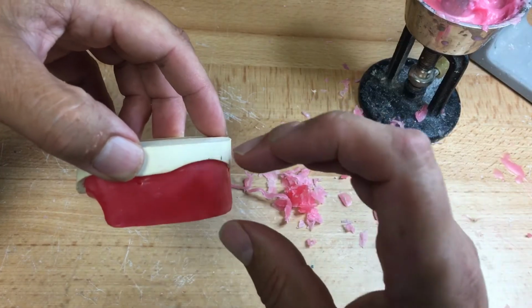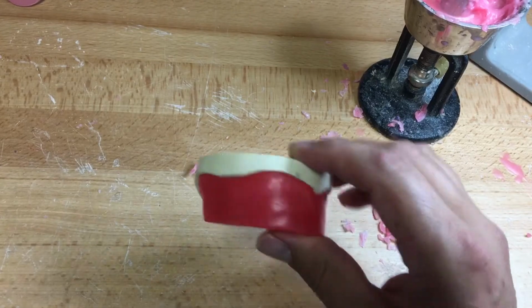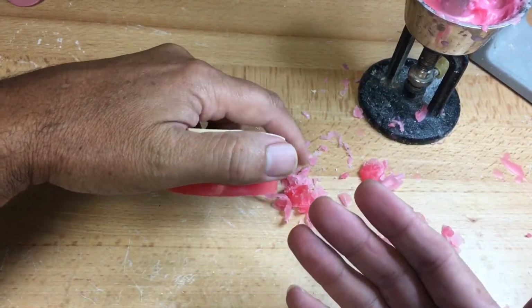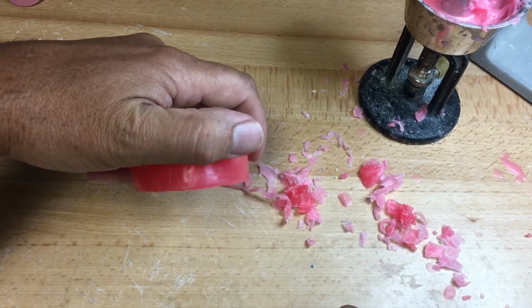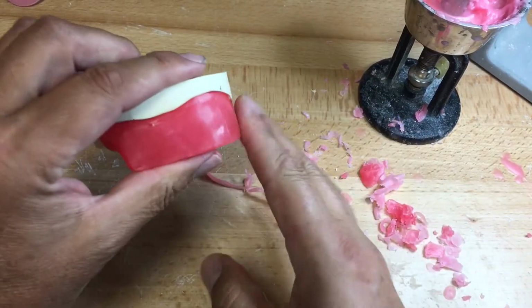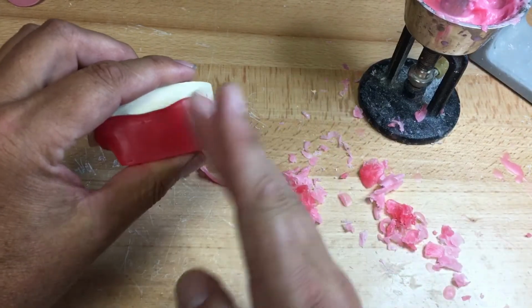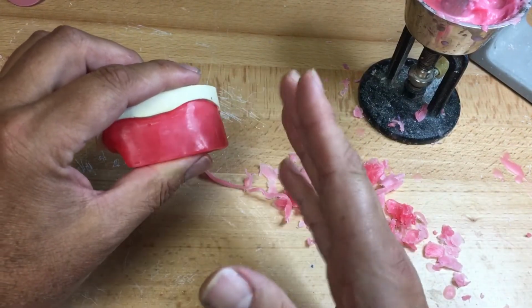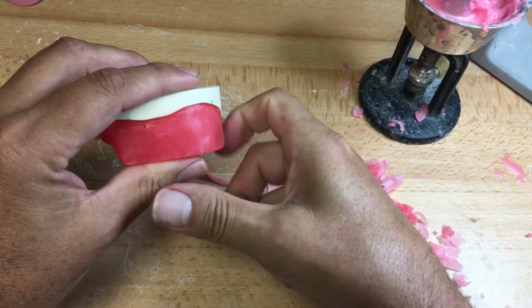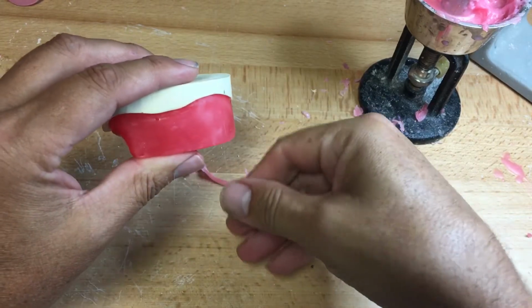The dentist will establish vertical dimension of that. Vertical dimension, how long? Naturally, the older the patient, the less teeth show. The younger the patient, the more teeth. The length of the lip, the tautness of the lip for labial support. If they want a lot of labial support, that's a Botox thing. Any kind of overextension of the labial flange will be on the orbicularis oris, and a kind of grimace will dislodge the denture.